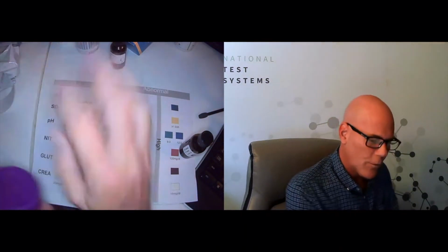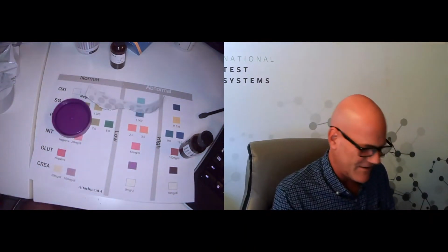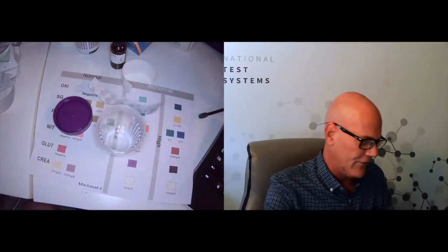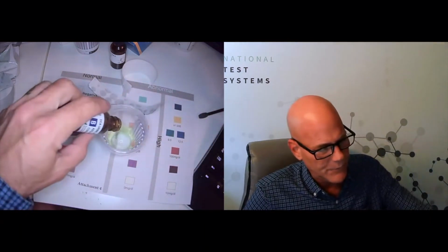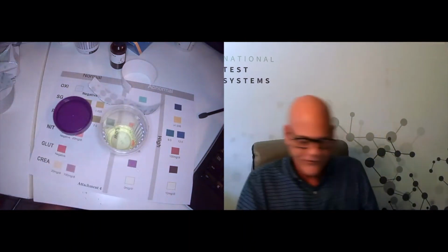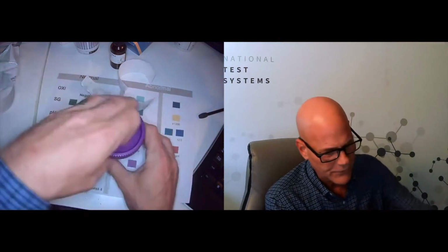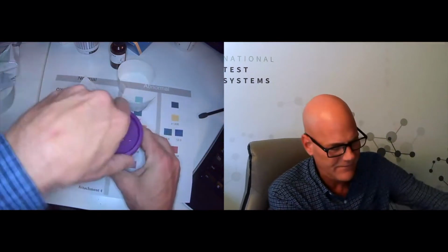I guess I could have opened these before I started recording. Sorry about that, guys. Go ahead and peel away the privacy panel, save us some time, and we'll go ahead and dump in the B solution. Put the lid on so I don't make a mess.